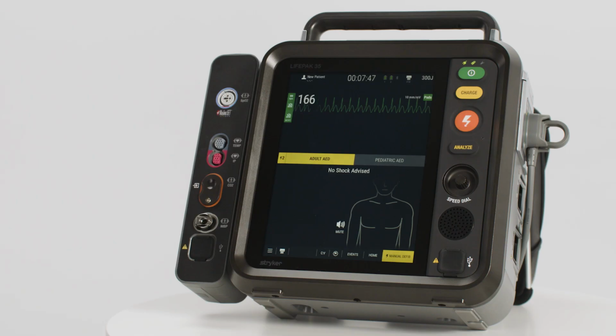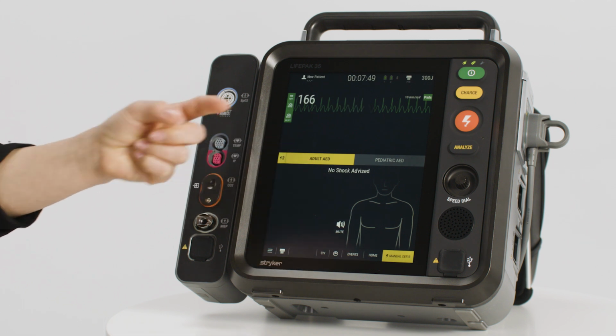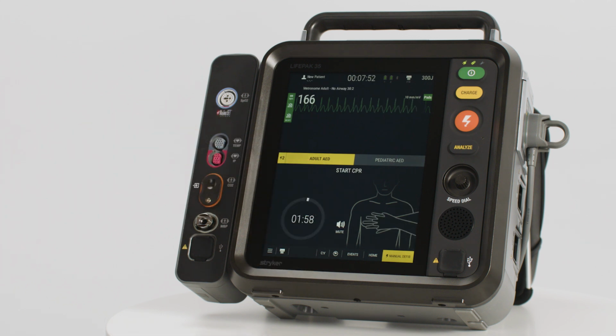Take care not to move the monitor defibrillator or patient during analysis. Follow the directions provided by the monitor defibrillator. After analysis, the device will provide one of 2 prompts. Shock advised or no shock advised message will occur. If the AED detects a non-shockable rhythm, a no shock advised message will occur. If a no shock advised message occurs, the defibrillator does not charge and no shock can be delivered. This message will be followed by the Start CPR prompt.